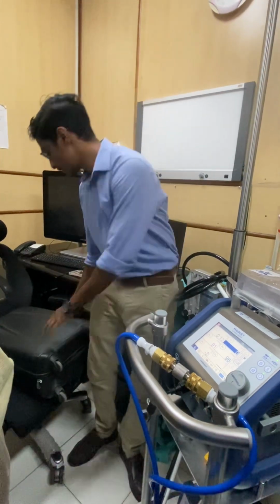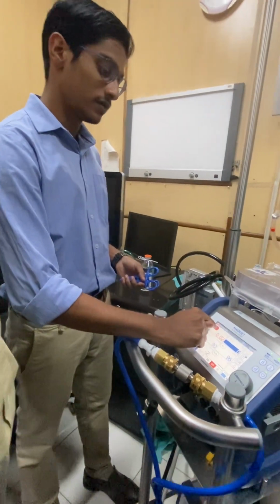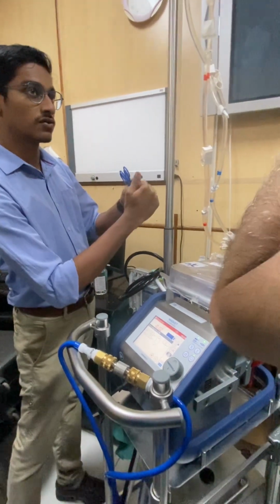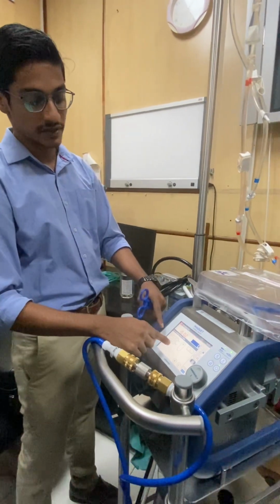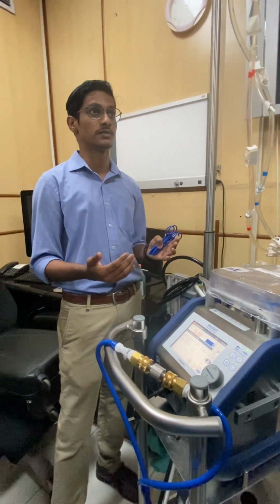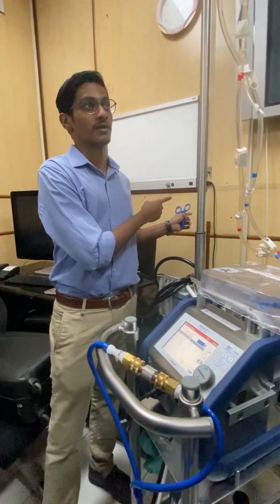Now it is 0. Now it is showing LPM below limit. You can also set limits for the higher and lower flows. For example, if the flow at any cost reduces below this, the machine should give you a warning. There is no self-correction over here. For flows there is no self-correction because flows can vary because of different parameters. For example, if the patient is hypovolemic and you have set this intervention, it will increase the RPM because the machine doesn't know that the patient is hypovolemic.